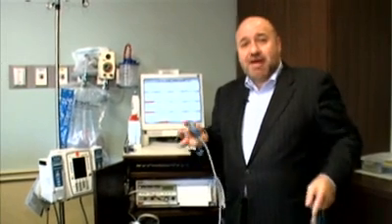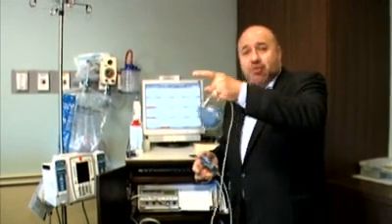These are two things that we want to follow when you're in labor, because we want to make sure that the baby's heart rate is nice and happy, usually in the 130s, 140s, 150s, 160s, and we want to make sure that you're having contractions every three to four minutes.